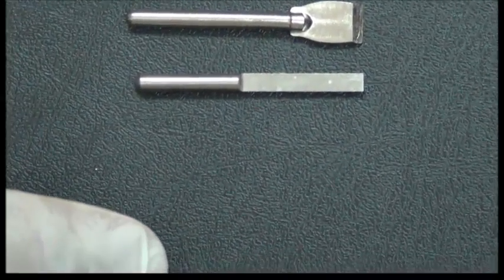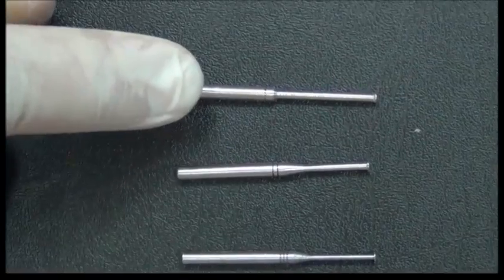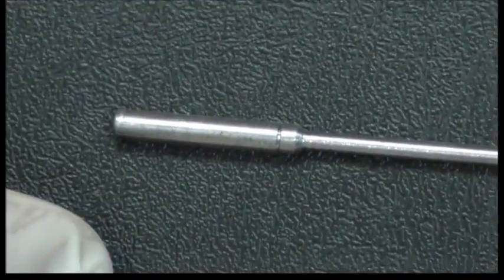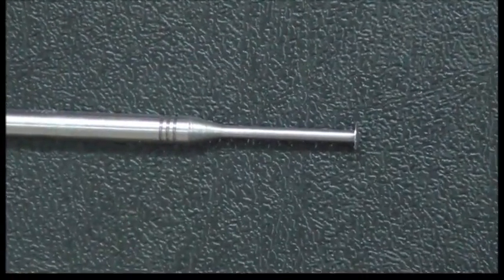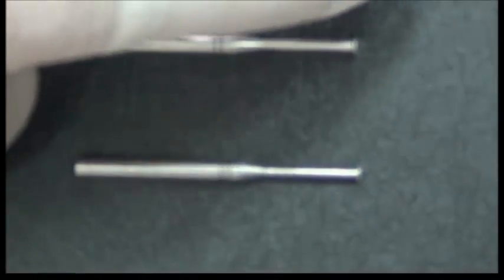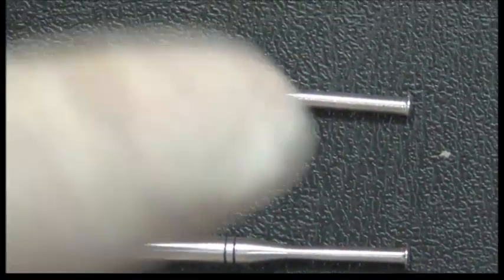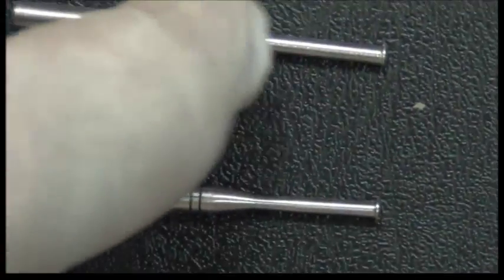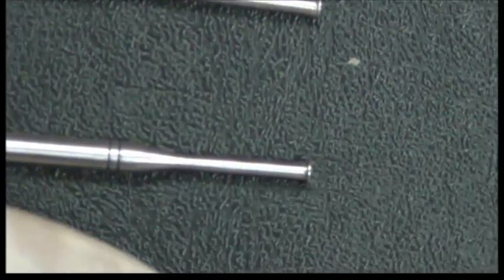These are undercut gauges. They measure the amount of undercut. You can find, if you look closely at these undercut gauges, that they have different sizes. They have the same vertical component as the analyzing rod, but on the end of them, they have another component with different measurements. This horizontal part is the undercut gauge itself, where it measures the undercut in relation perpendicular to the vertical part. As you see, we have a small, a bit larger, and larger.